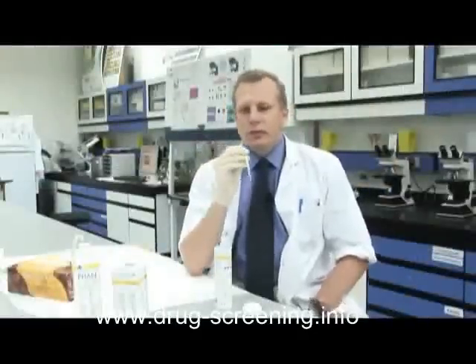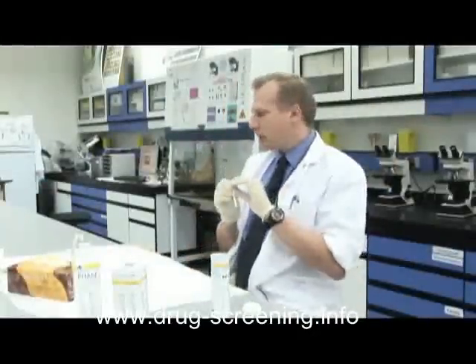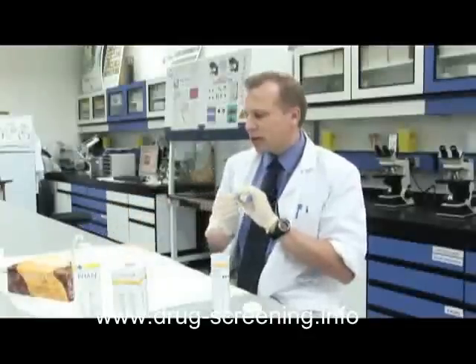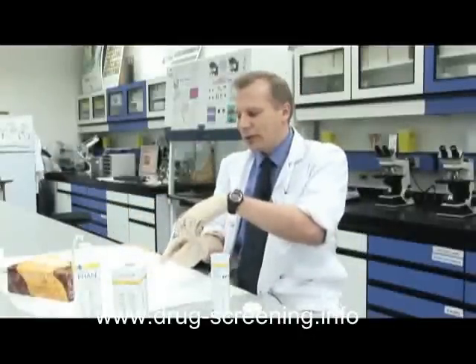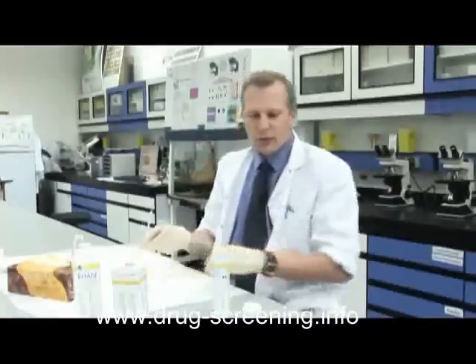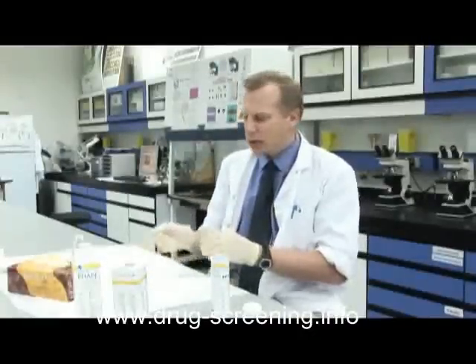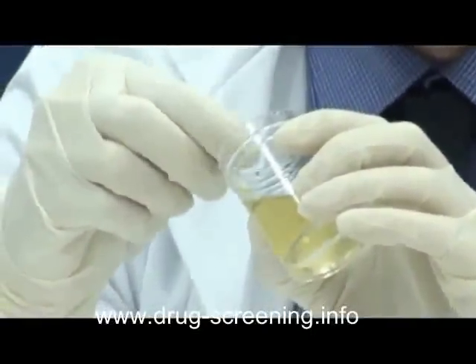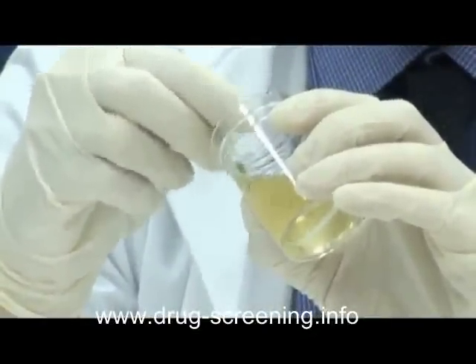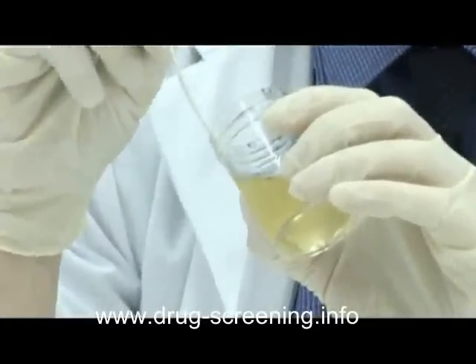I'm going to demonstrate the dipstick test on a couple of urine samples that I have here. We already know what to expect in the urine samples, so test results should be a given, providing the strips are working okay. Of course the strips being chemically based they have a storage life and it's important that we don't use them past the expiration date. We insert the strip into the urine sample making sure that it's thoroughly immersed and that all the squares are wet so that the chemical will react.